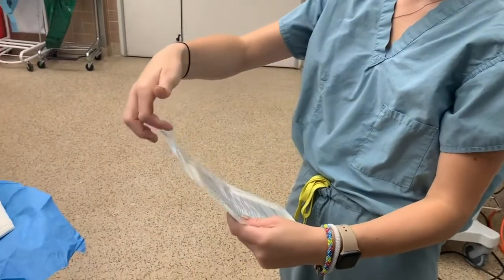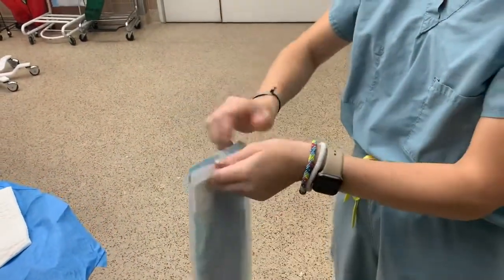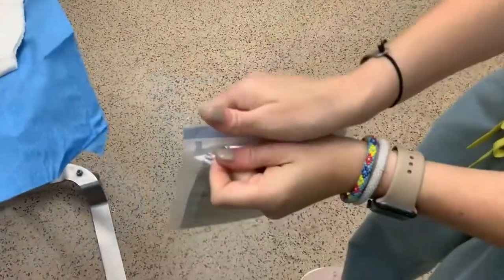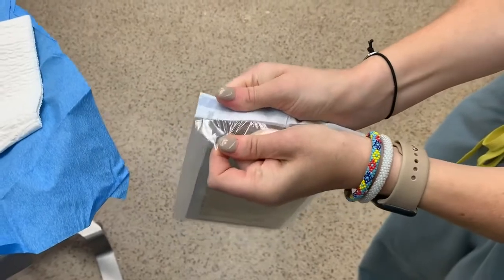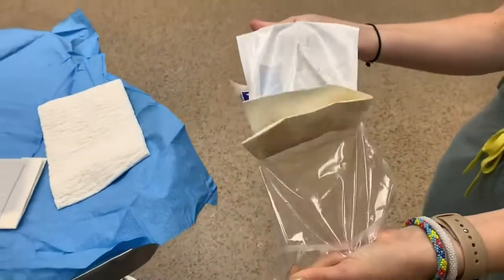To open your gloves, gently break the tabs at the corners of the packaging. Next, you'll want to position your hands so that the length of your thumb and part of your palm span the length of the package leaflets. Then pull the leaflets down and out while rotating your wrists so that the leaflet edges do not fold back in towards your gloves.